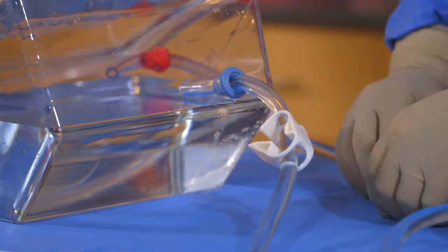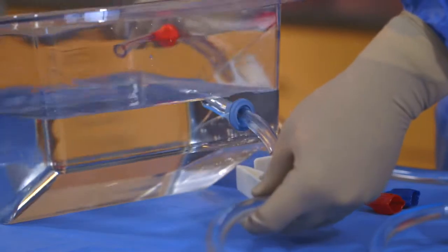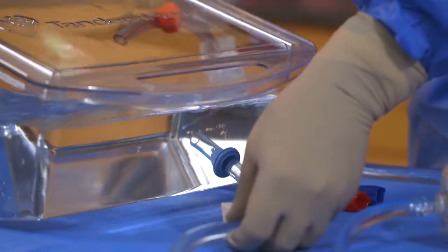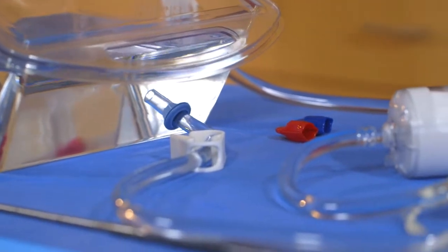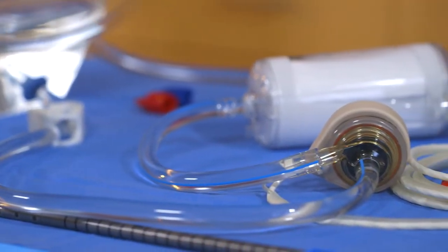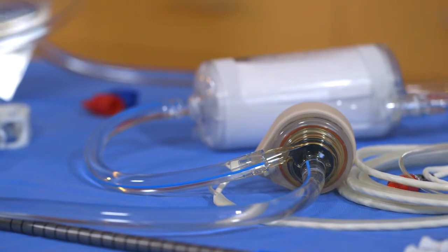Once the basin has been properly filled, the sterile operator tilts the basin into the priming ready position. Saline will gravity fill the tandem heart pump and part of the tandem lung oxygenator.